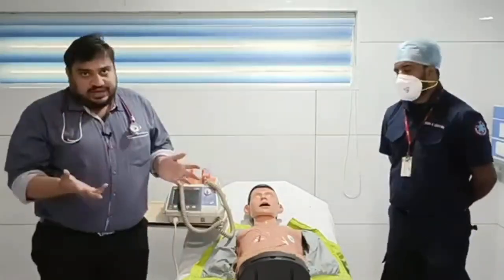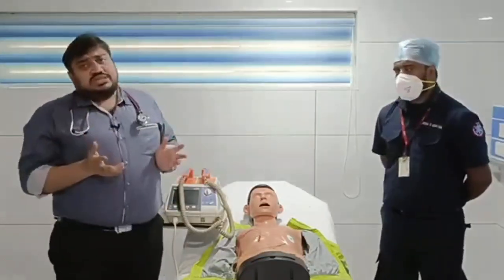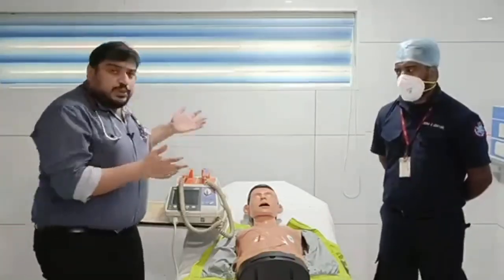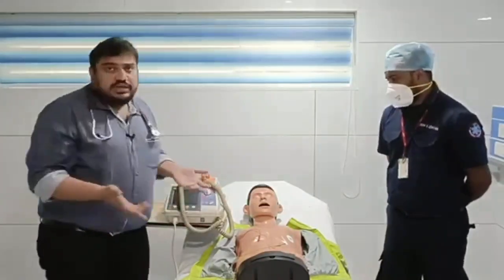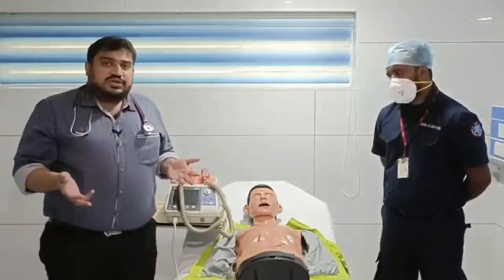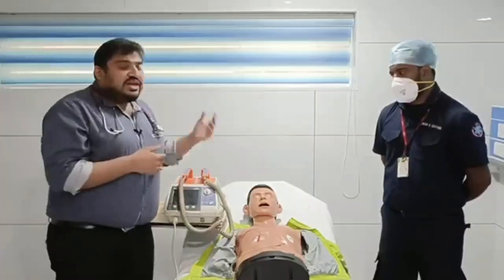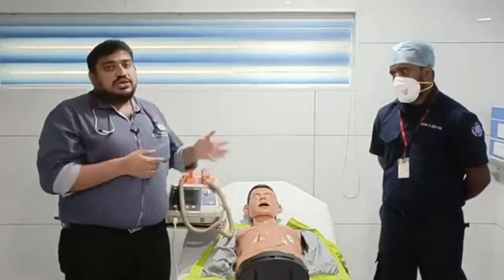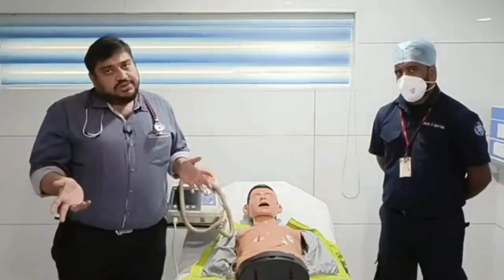So how to apply it? That is the next most crucial point: the amount of energy that you need to select. Somebody will be doing CPR on the patient, who might be intubated, and there will be a lot of people in and around. So the first most important thing is that you have to recognize that it is a shockable rhythm. At the time of rhythm check, you have to see whether it is a shockable or a non-shockable rhythm. As we described, VT and VF are shockable rhythms.